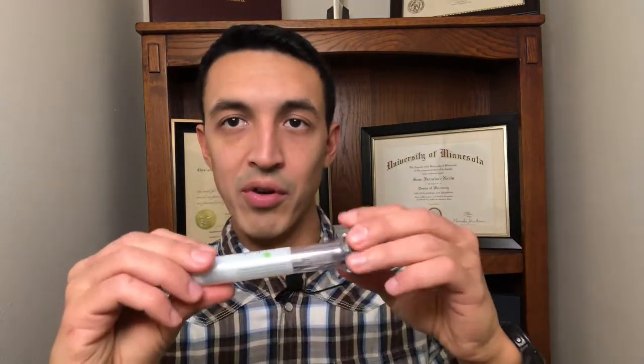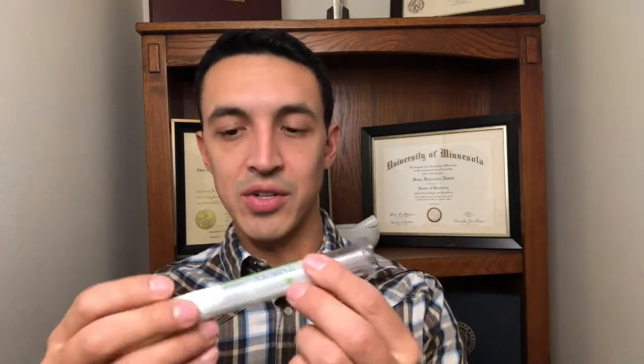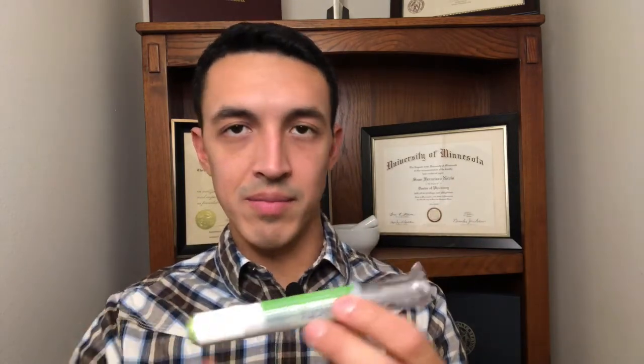It's pretty easy. The injection doesn't hurt. There's 3 main steps. Again, you're gonna remove the cap. You're going to choose where you're gonna inject the needle. Again, the abdominal region is the most common. You're gonna put it against your abdomen. You're gonna make sure you unlock it, and then you push the button for 5 to 10 seconds until you hear that second click, and then you can remove the device.